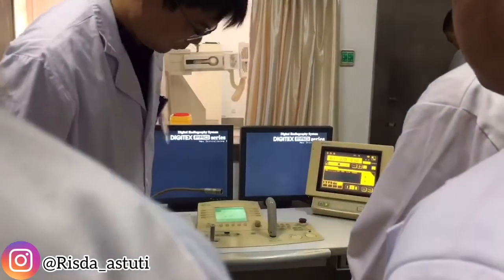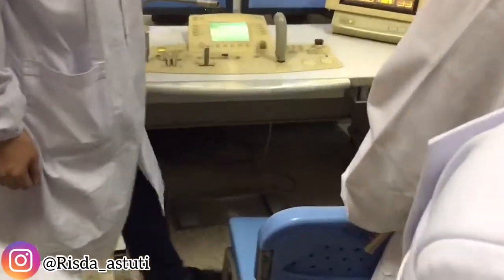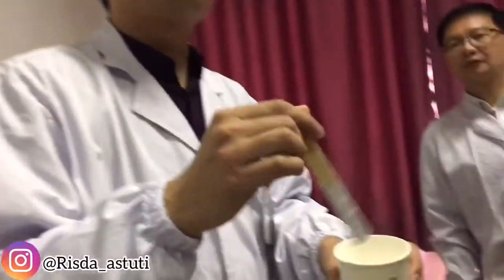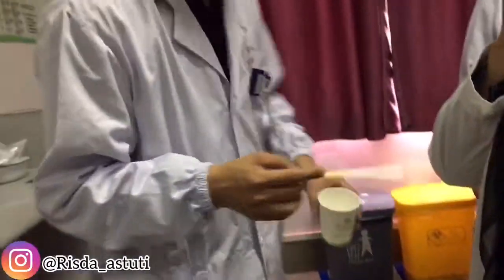This is the paddle — it's the switch for the X-ray beam. If you want to stop the X-ray beam, you just lift the paddle. This is barium sulfate — it looks like milk, but it's not tasty.